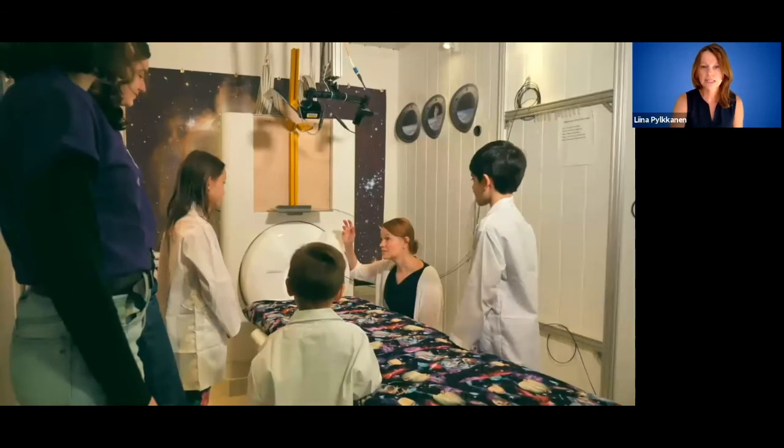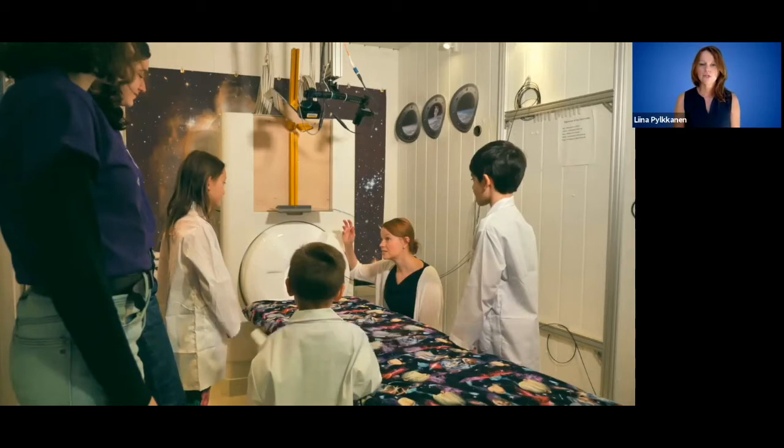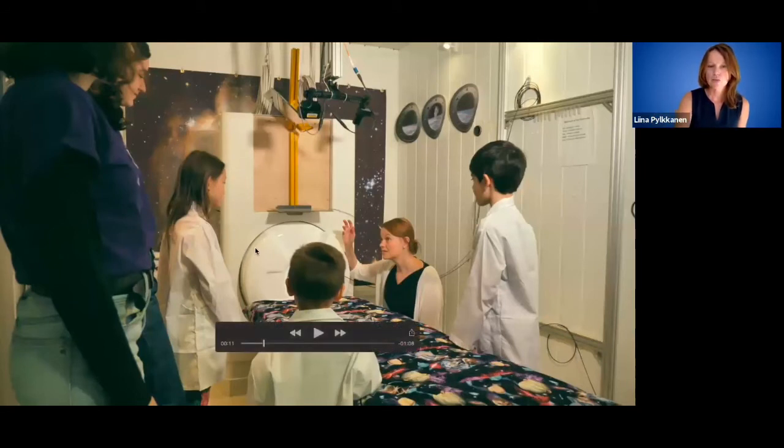Here you can now see there's a bed, and then there's this tank, sort of the liquid helium tank is inside of here, and then the MEG sensors lie inside the liquid helium. Another way in which we are able to enhance the brain's signal and block out other urban noise is by placing so-called reference channels or reference sensors into the setup as well.